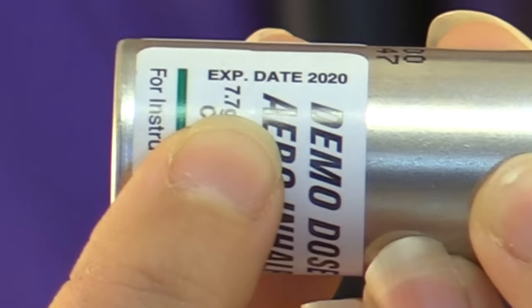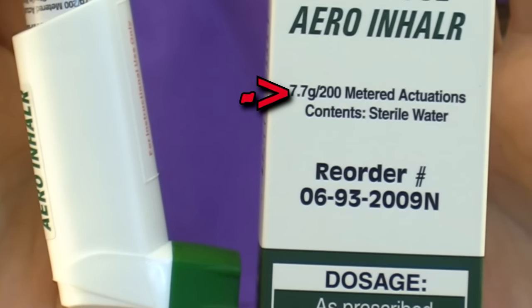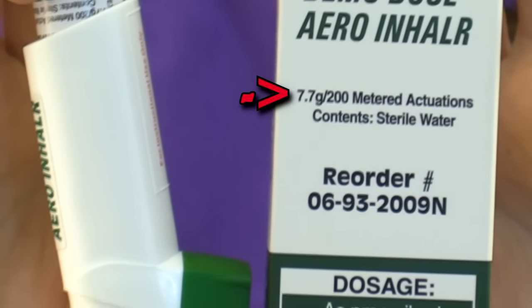First, you want to prime the inhaler. You'll do that if this is the first time using the inhaler, if it's been dropped, if the patient hasn't used it in a week or more, or if it's been recently cleaned. While doing that, check the inhaler to make sure it's not expired — you can do that by popping it off the canister and looking at the date. Also quickly check to make sure there are enough doses in the inhaler, as a lot of inhalers have a counter or the box will tell you how many doses are inside.